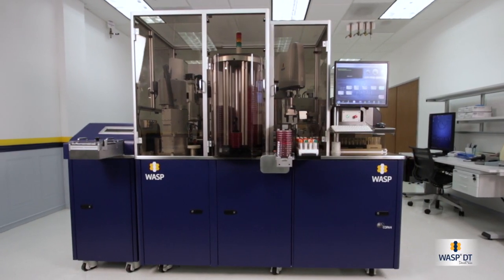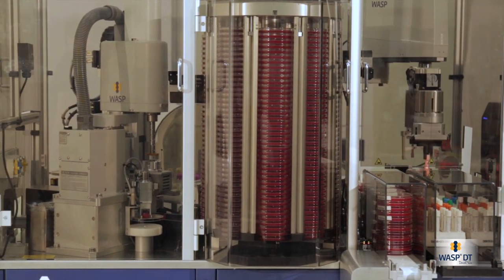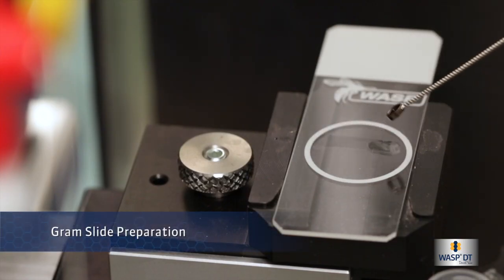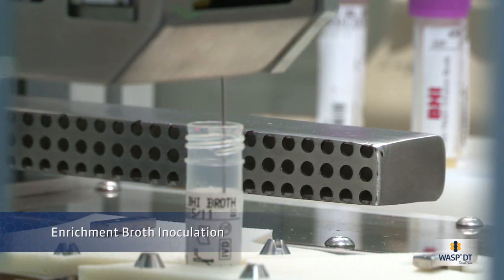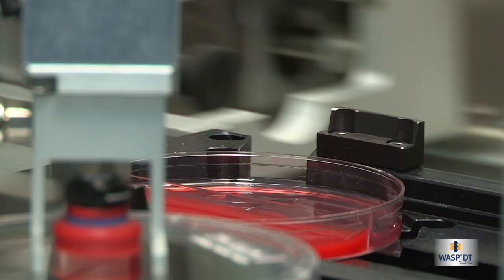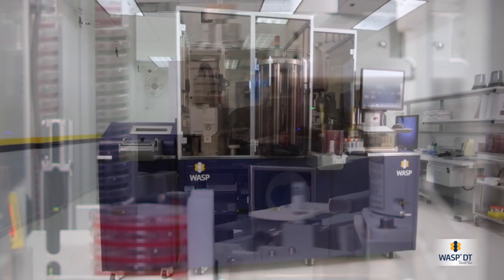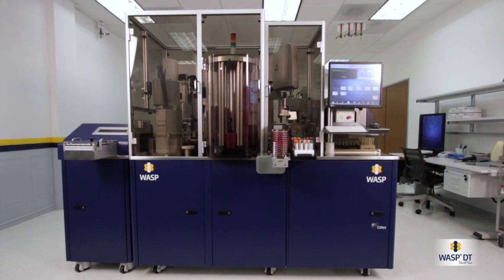WASP is an open-platform modular instrument and the only one in its field which addresses all aspects of automated microbiology specimen processing — planting and streaking, Gram slide preparation, and enrichment broth inoculation, to name a few. WASP is not a closed box that requires the microbiology lab to adapt to it; it's an extension of the laboratory professional. WASP is a direct reflection of what we stand for at Copan: innovating together.